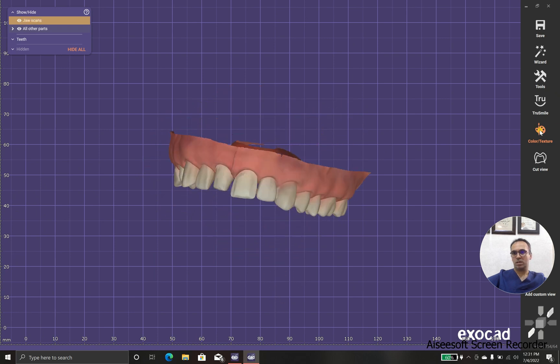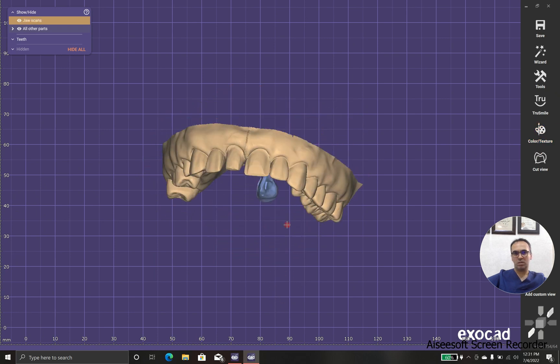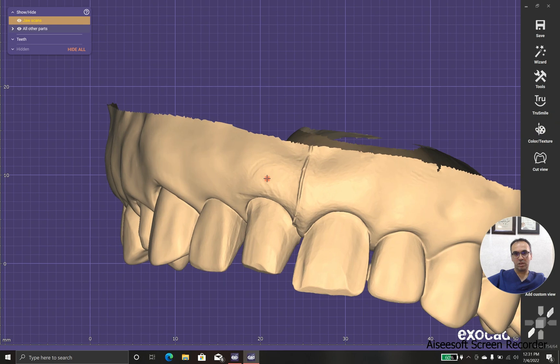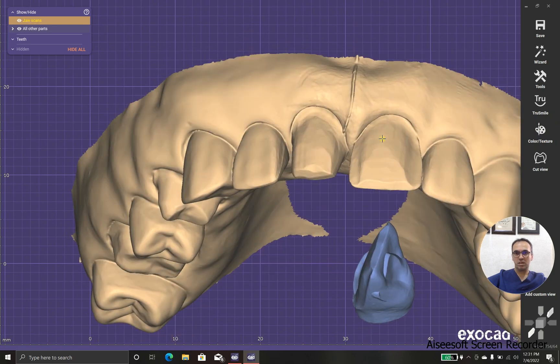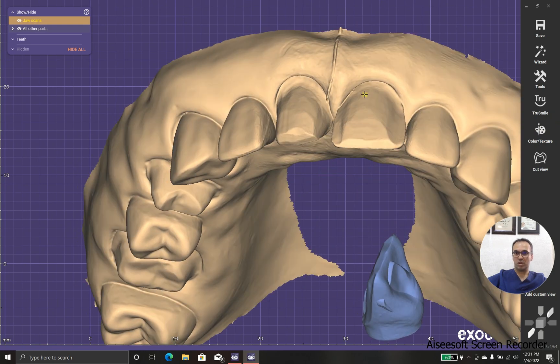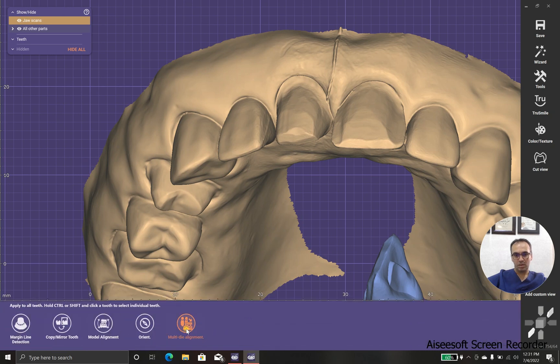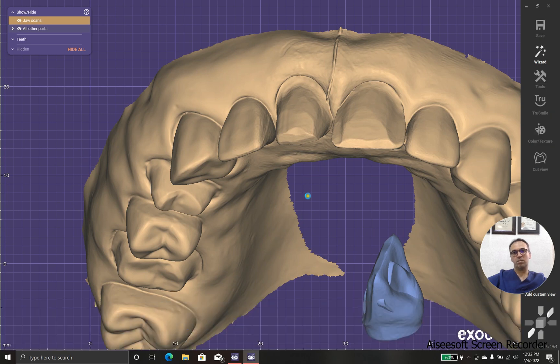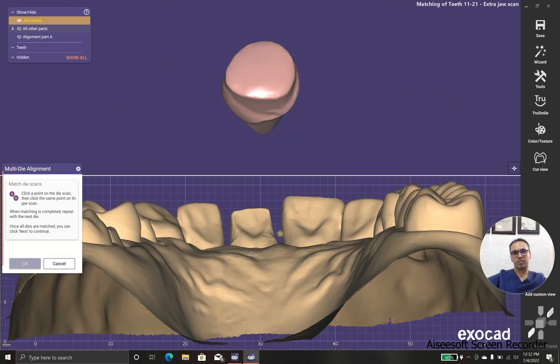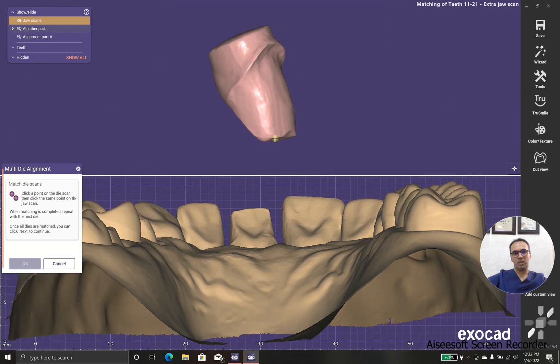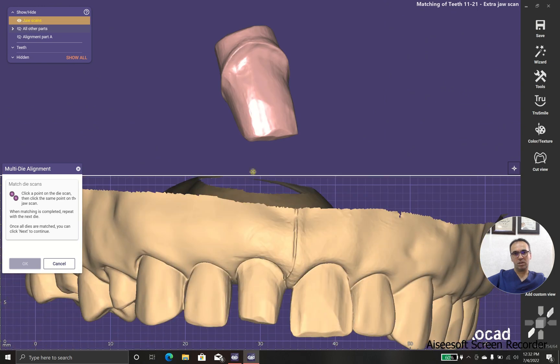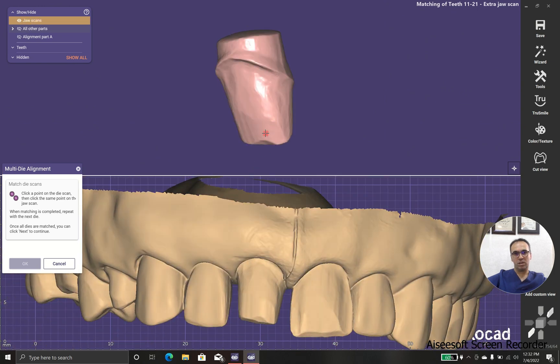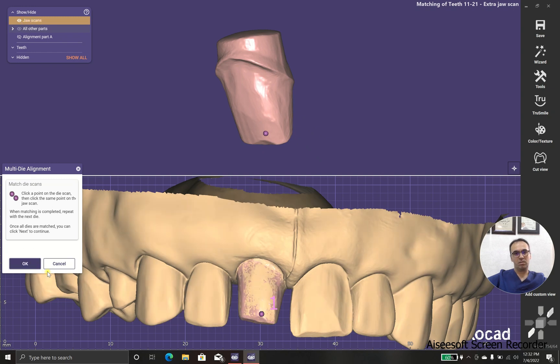Okay, why did I use extra die? Look at the margins, they're almost sharp, not completely sharp, especially over here. So I bring some extra die, and I'm not afraid of using it. Okay, perfect.